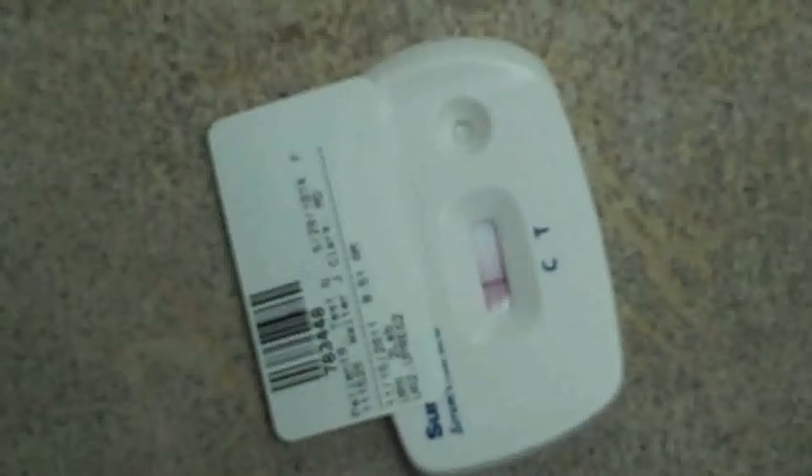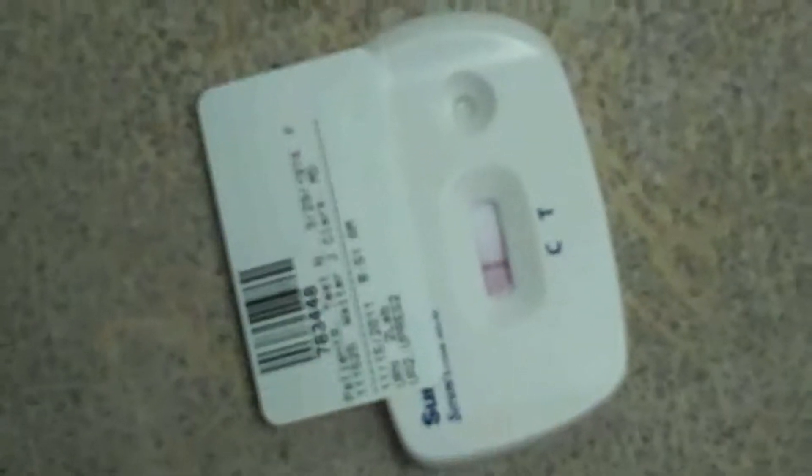As the sample migrates, you can see a line forming — a red or pinkish line being formed at the C line. This is your internal control, which verifies that your test is operating correctly.